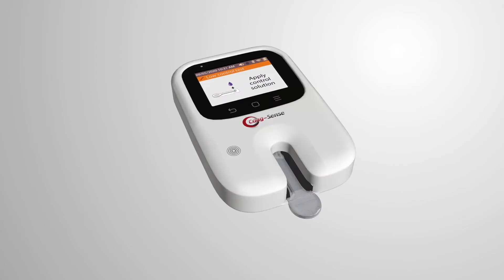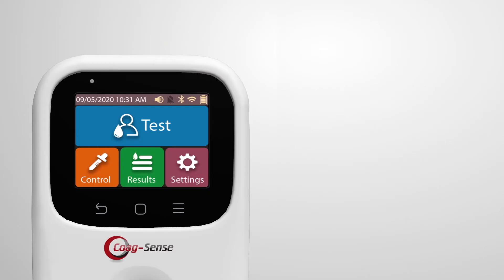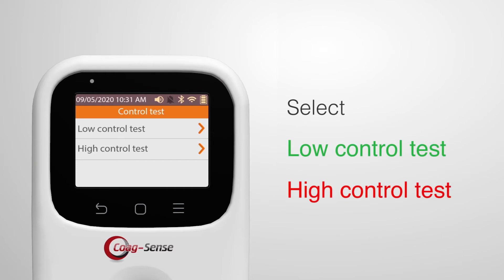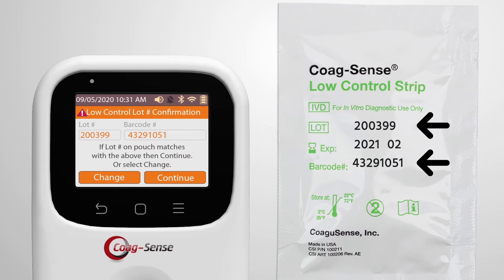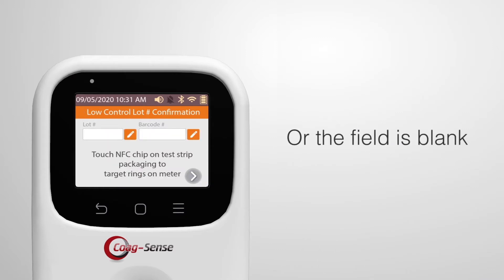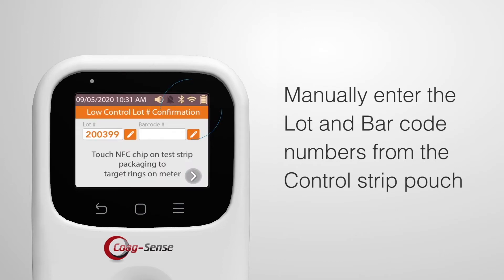This video provides a brief overview of how to perform a control test. Controls should be tested with each new lot of test strips when they are received. Press the Control icon on the display and select either Low Control Test or High Control Test. Confirm that the Control Strip lot number displayed matches the lot number on the test strip pouch, then press Continue. If the number does not match or the field is blank, touch the NFC tag to the NFC scanner on the meter. If the NFC tag is not available, manually enter the lot and barcode numbers from the Control Strip pouch.